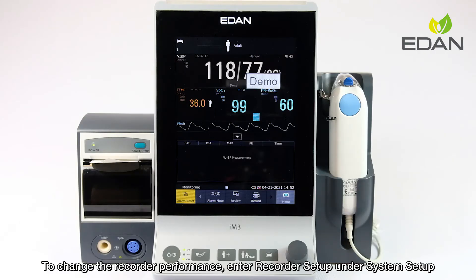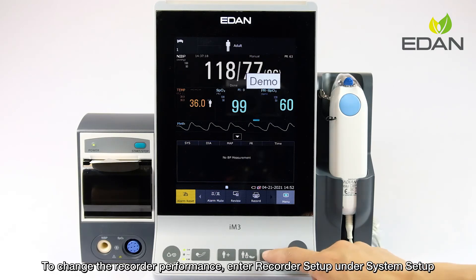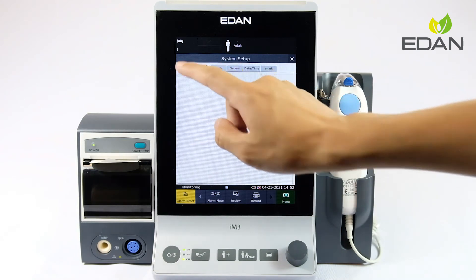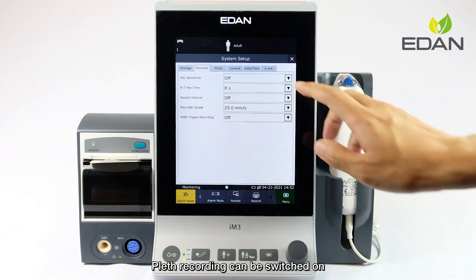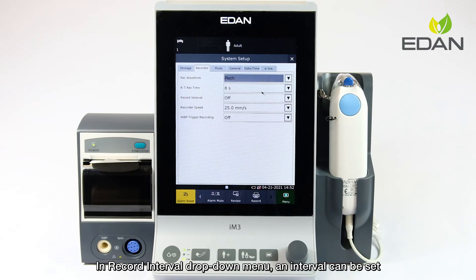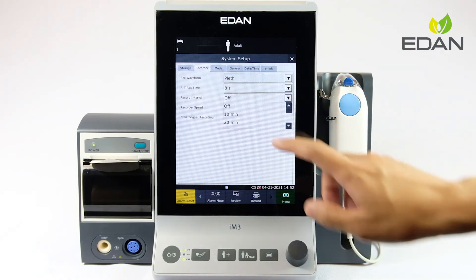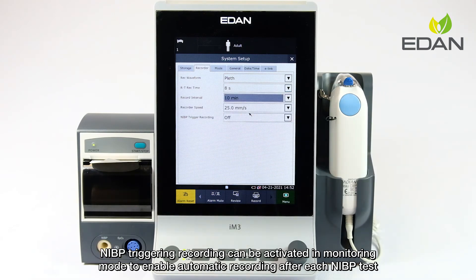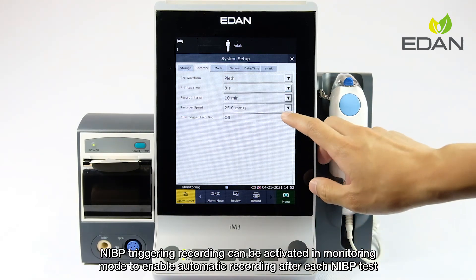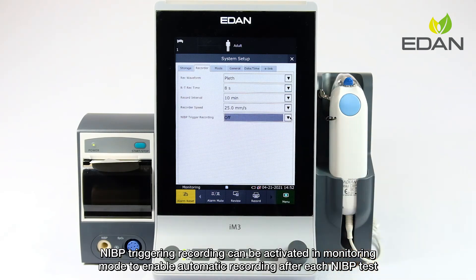To change the recorder settings, enter recorder setup under system setup. Waveform recording can be switched on, and a recording interval can be set in the record interval drop-down menu. NIBP-triggered recording can be activated in monitoring mode to enable automatic recording after each NIBP test.